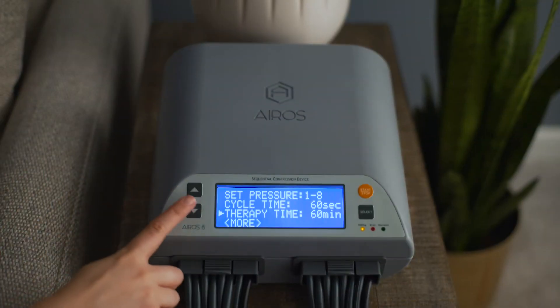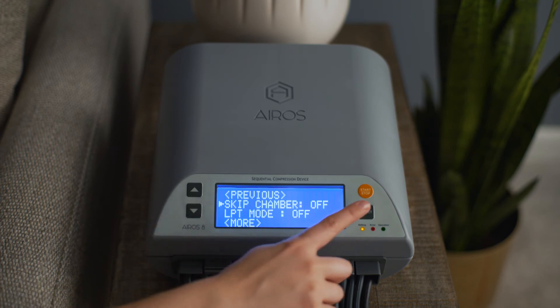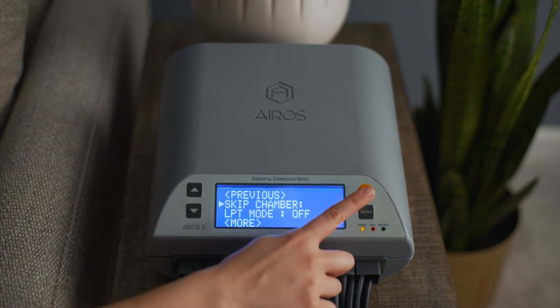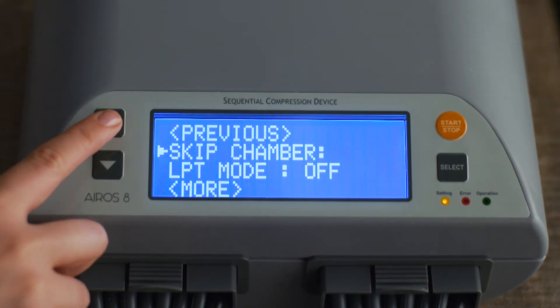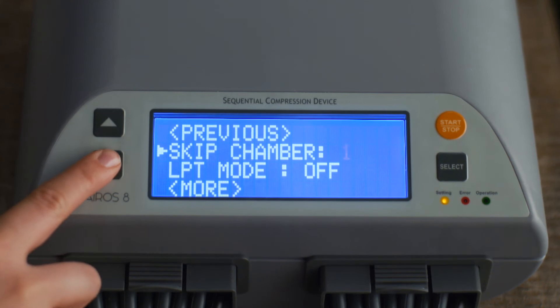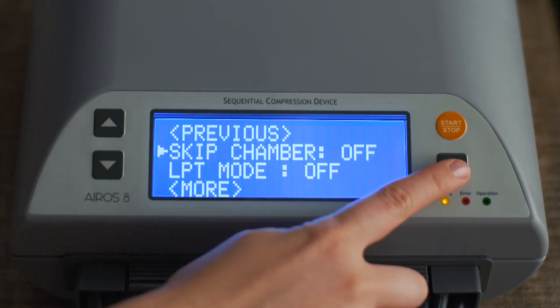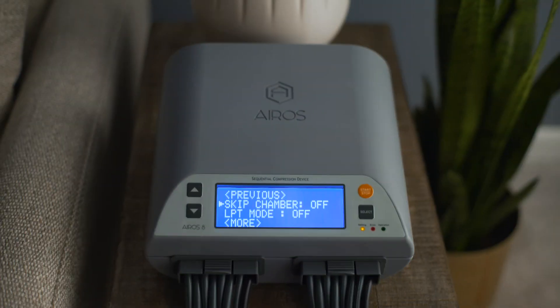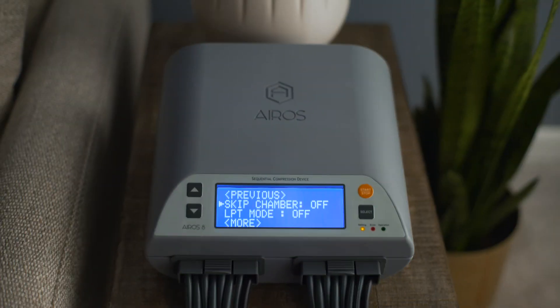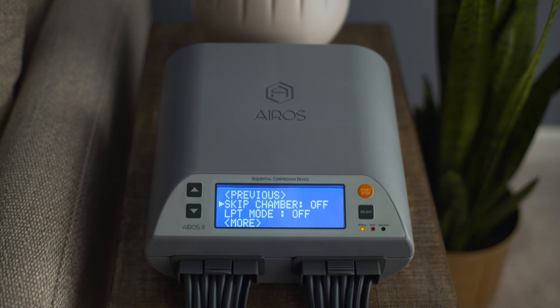To skip pressure in a chamber, scroll to Skip Chamber and press the Select button. You can use the Up and Down buttons to select the chamber to skip. Press the Select button to confirm your selection.